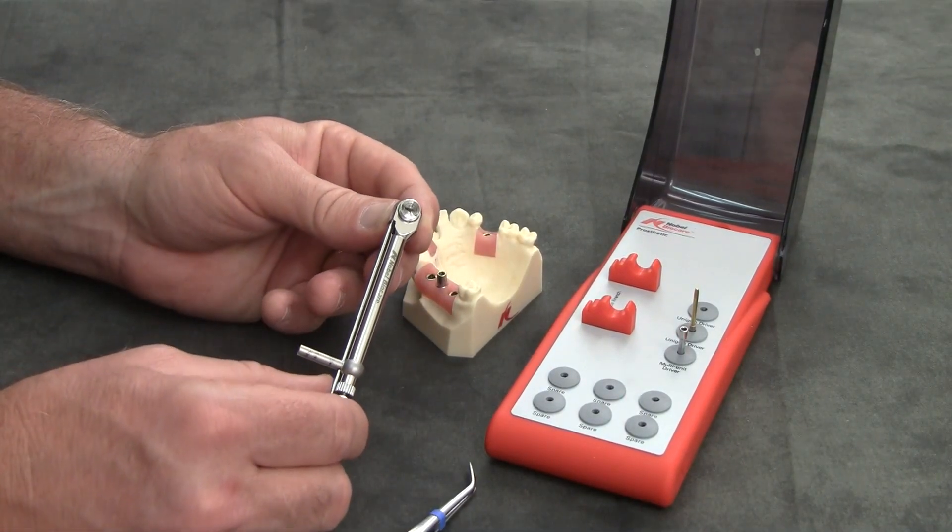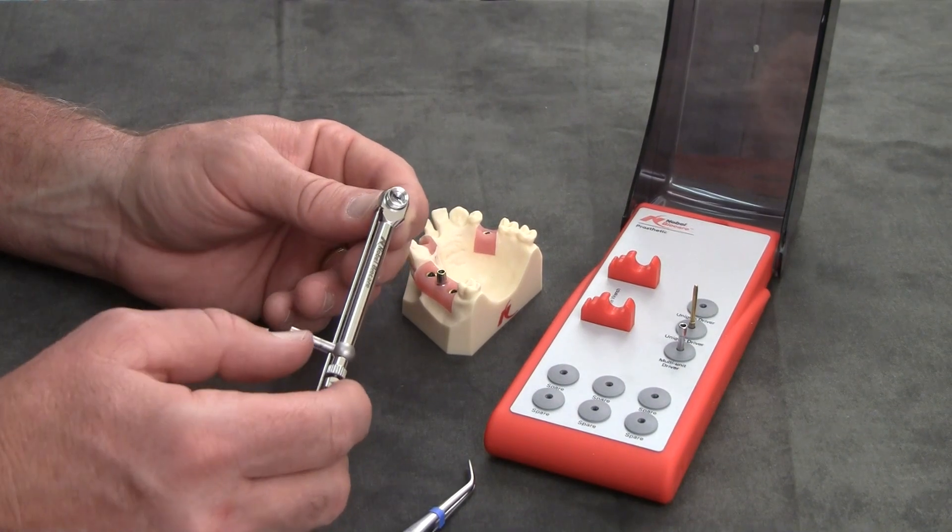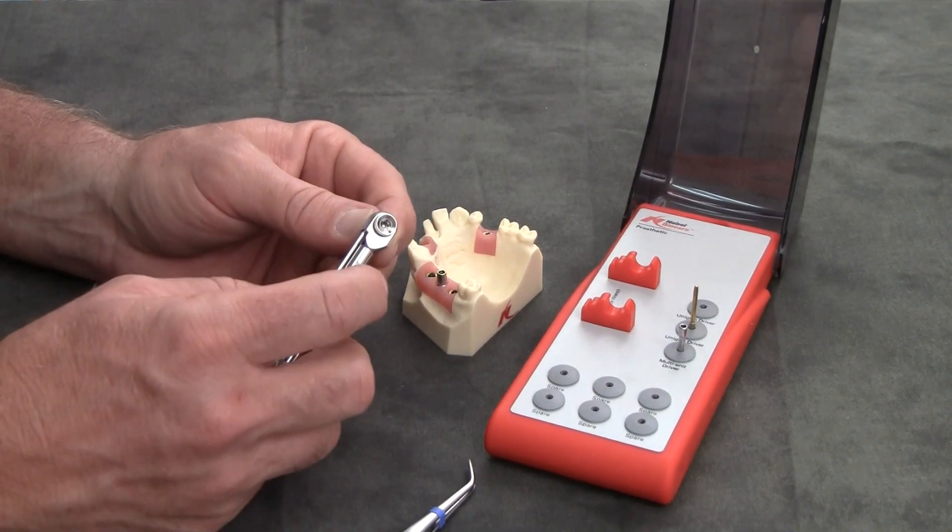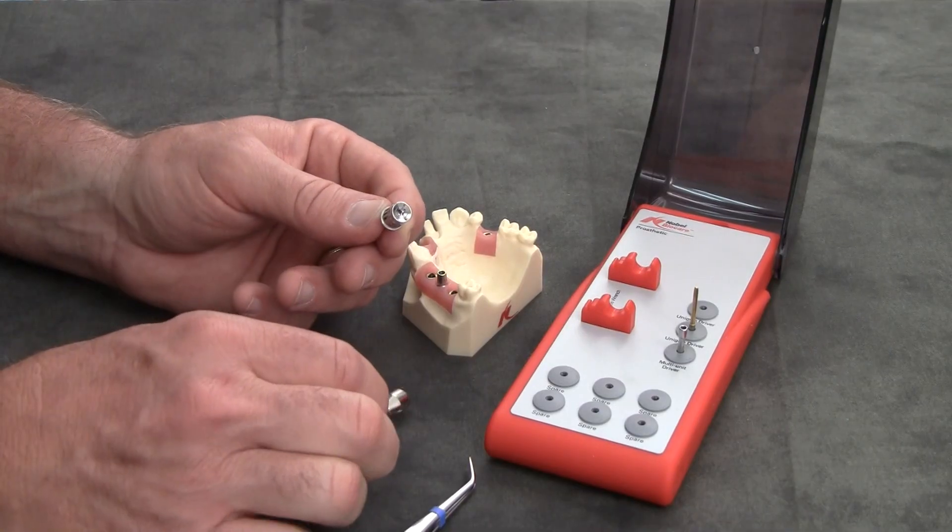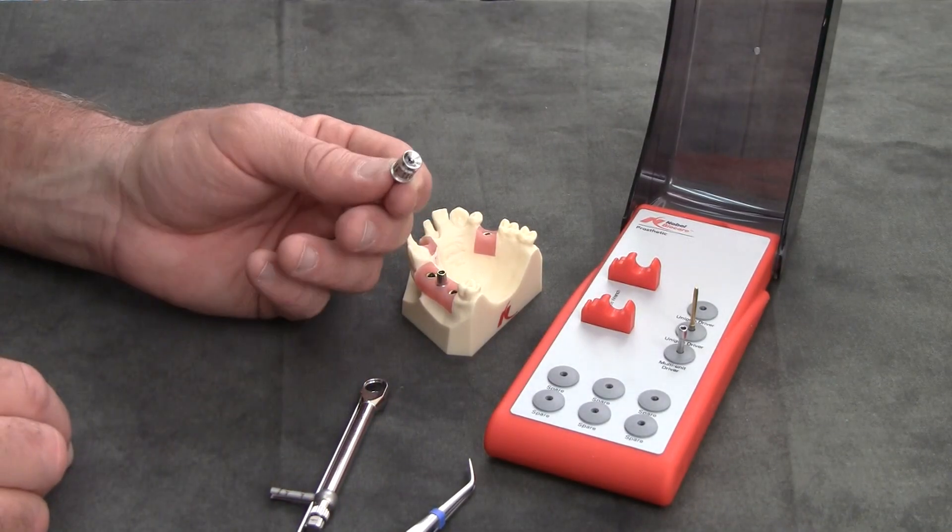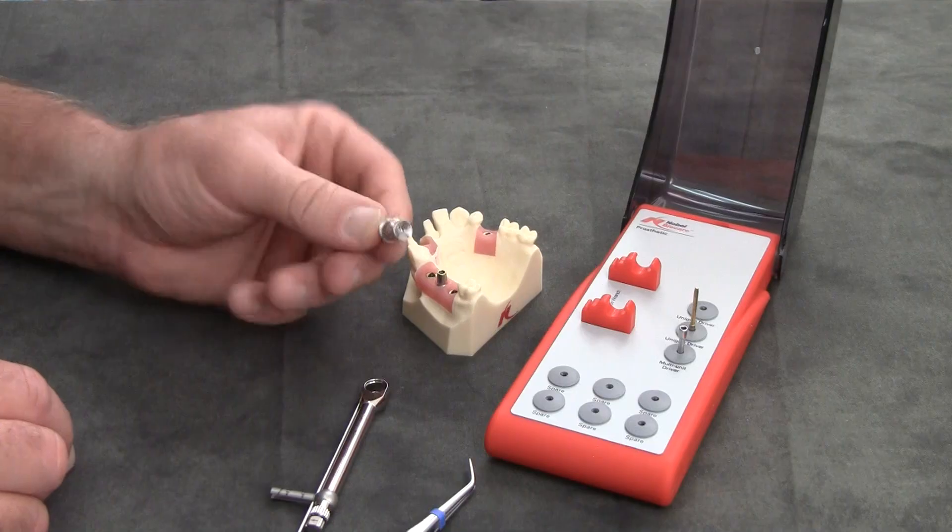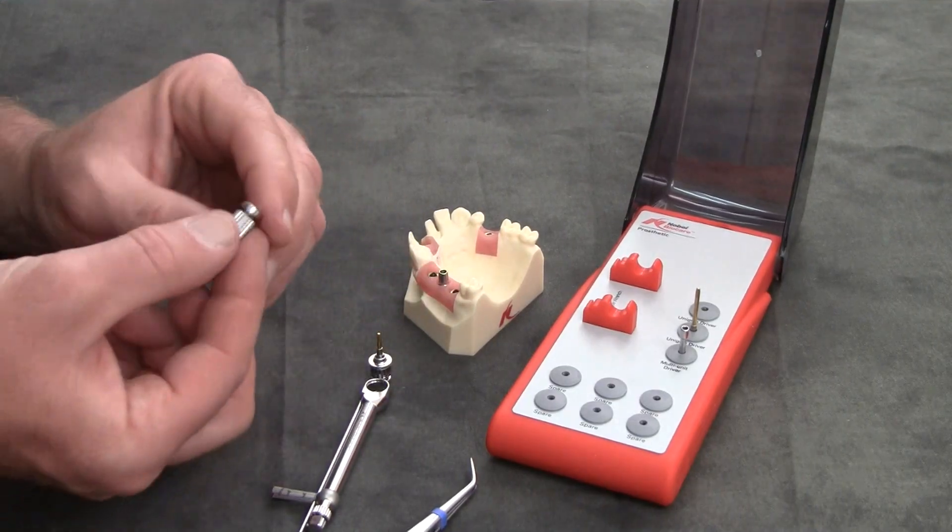Another thing that I've noticed at a few offices is that there is a little bit of confusion on the proper adapter to use. There is a manual wrench that looks very similar to this insert here.